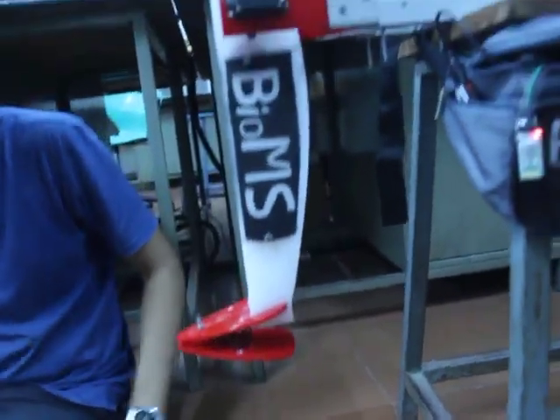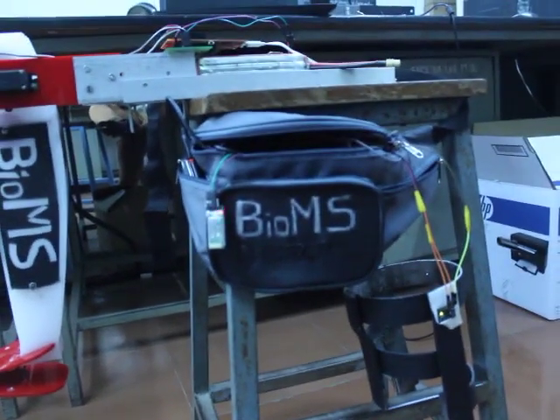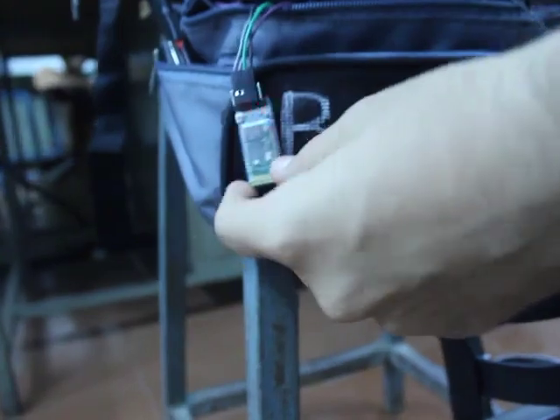This is the mount of our leg. Moving forward, we have a fanny pack which the user will wear. It has a Bluetooth module which will send the values being processed on the TI board, which is powered through a power bank.